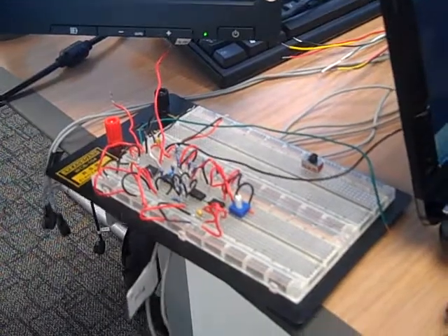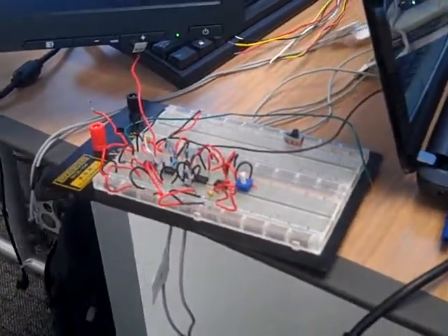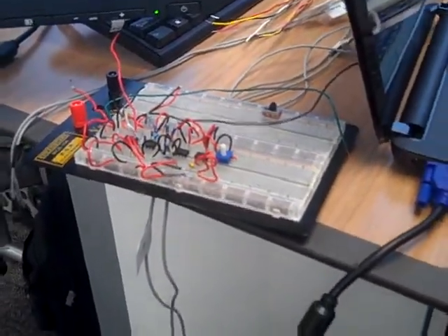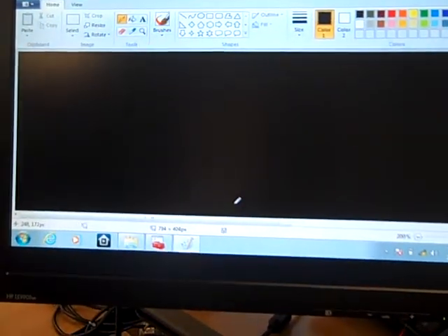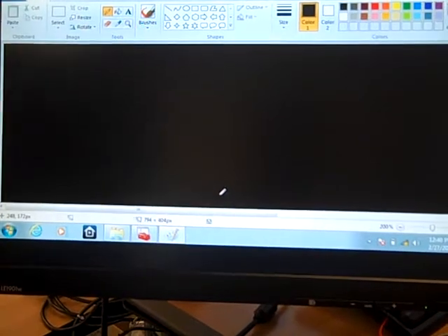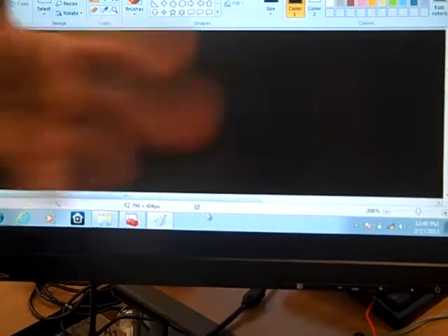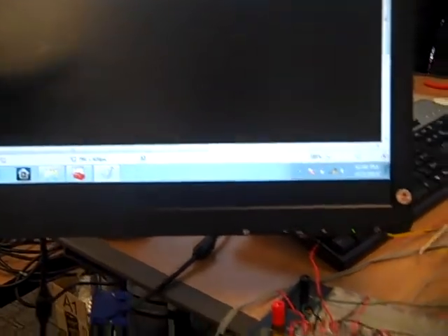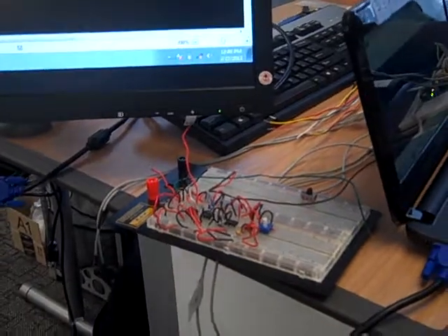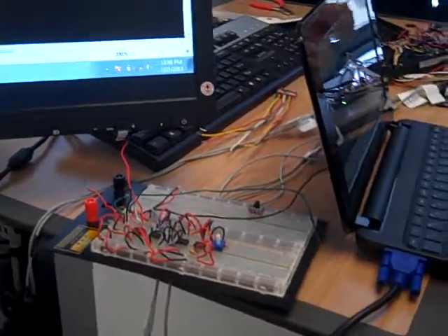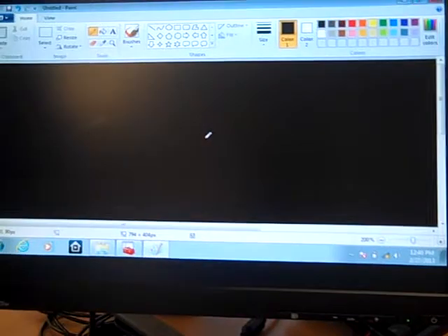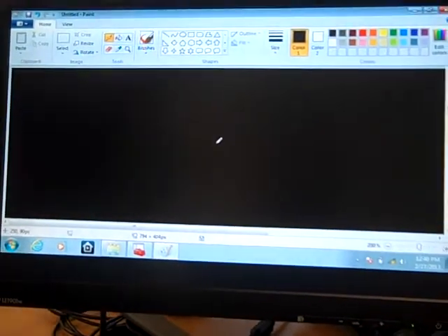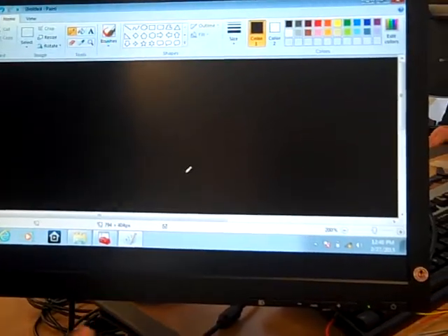Well, the only purpose of this device is that we want to try to find different ways of controlling a mouse on a computer. Say for like people who don't have their hands, amputees, quadriplegics. So they can control a computer mouse using facial expressions. Wow.